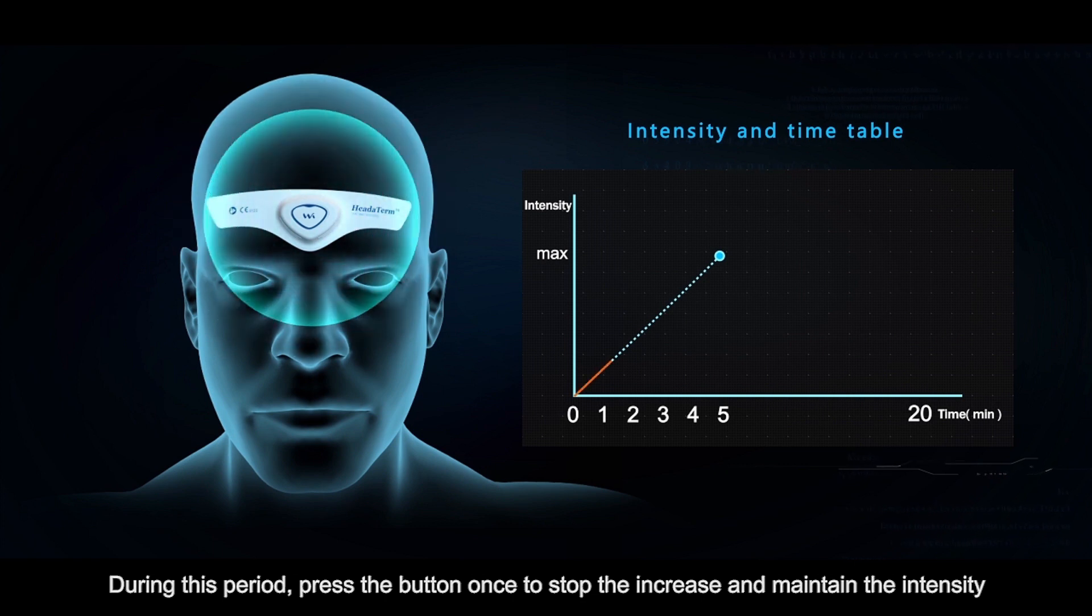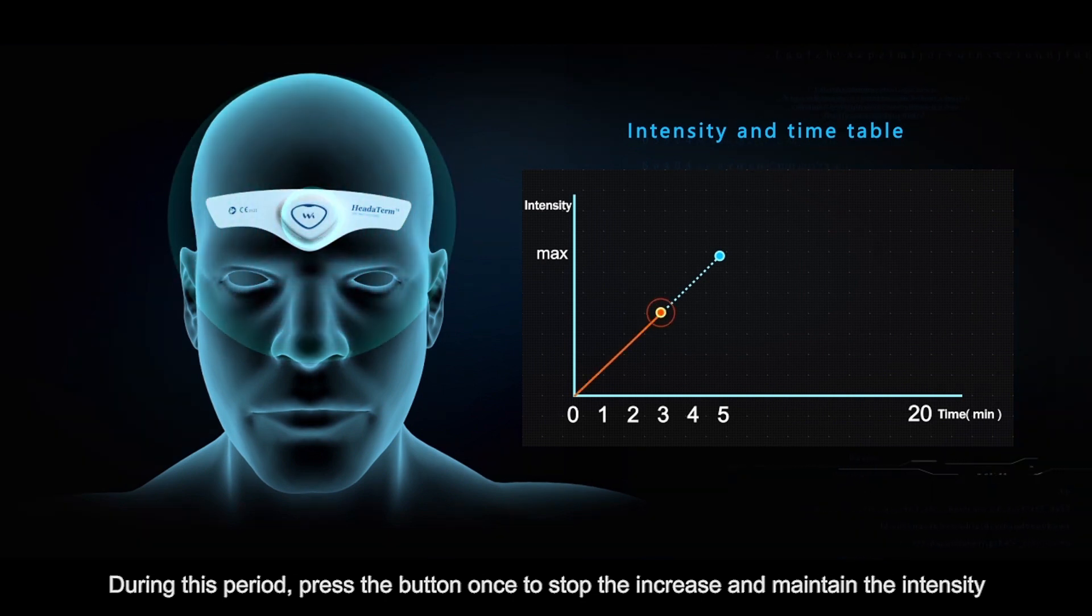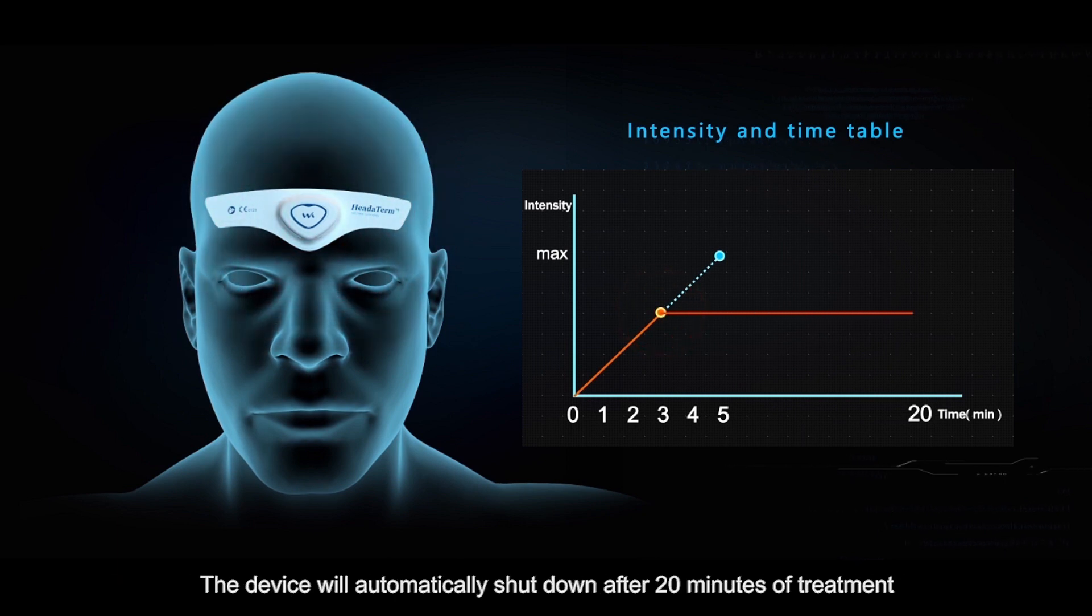During this period, press the button once to stop the increase and maintain the intensity. The device will automatically shut down after 20 minutes of treatment.